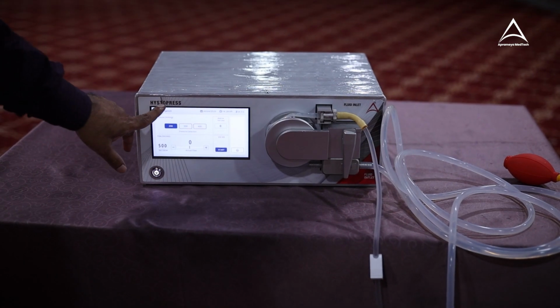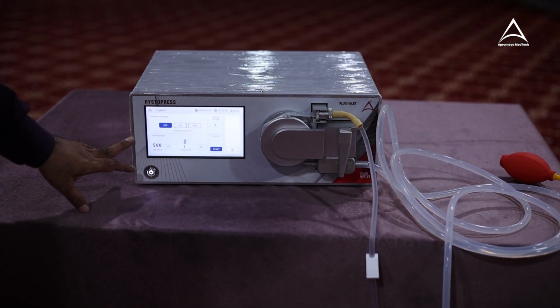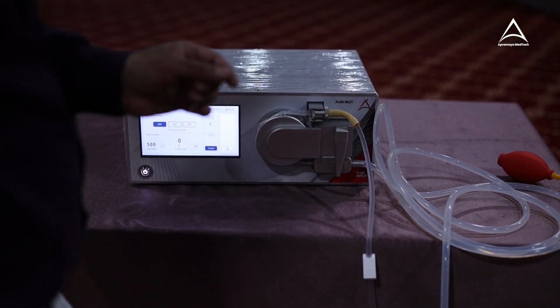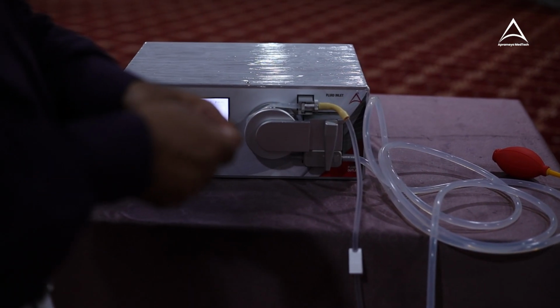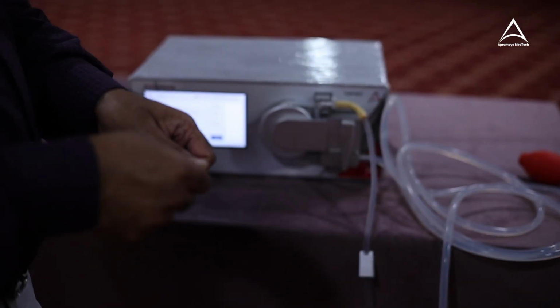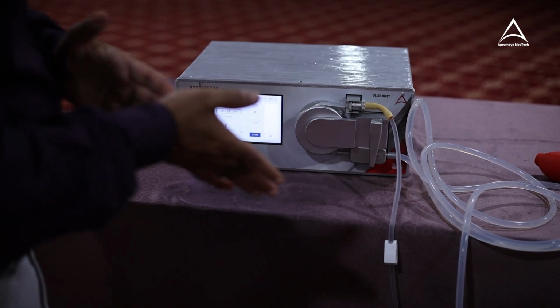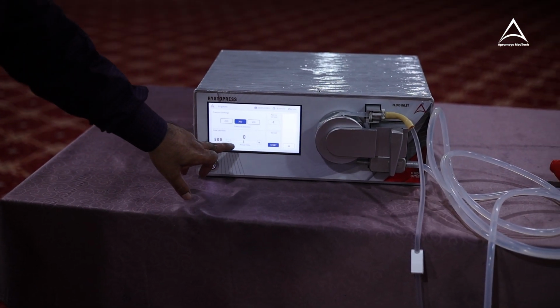Now I am in laparoscopy irrigation mode. This is a controlled irrigation mode, what we say, because we can control the irrigation with the luer lock on and off. There is no need to use foot switch to stop or start the flow of the irrigation. So in this, you have to just select the pressure, flow.